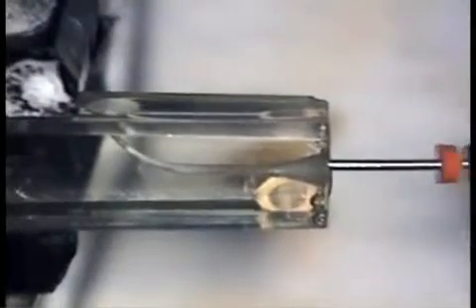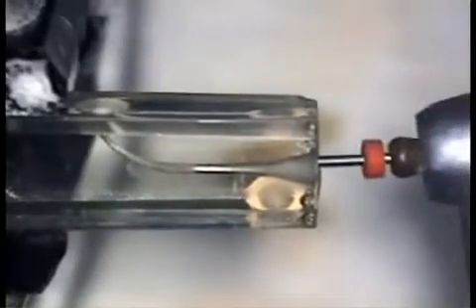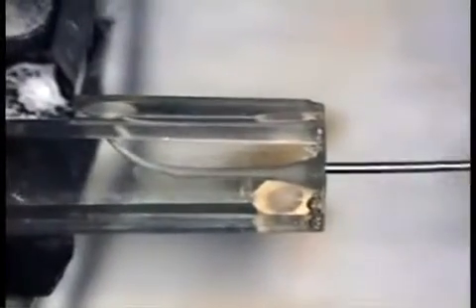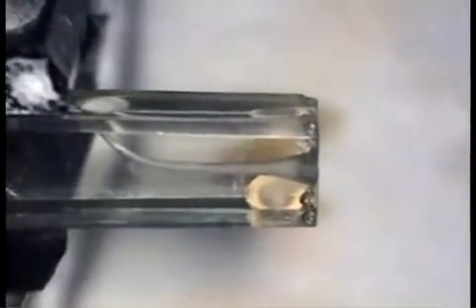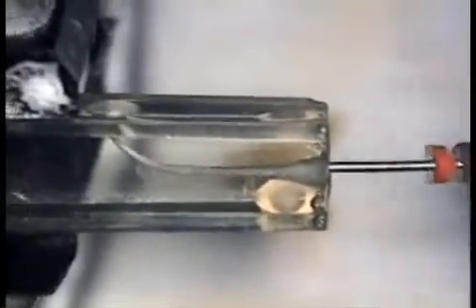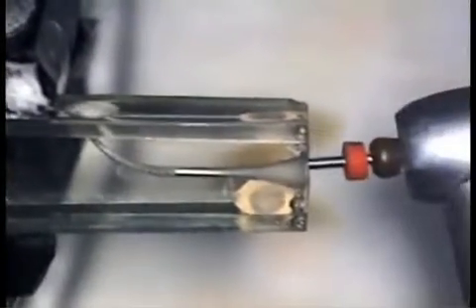Again, please be aware that at no point is excessive apical pressure applied to the instruments to gain apical length. By using low apical pressure, we are not trying to avoid breakage. That is prevented by the short arc of motion. Rather, we are preventing the impaction of apical debris, which could then be a causative factor in canal distortion. Please note the final shaping of the canal, free of distortion and efficiently achieved.